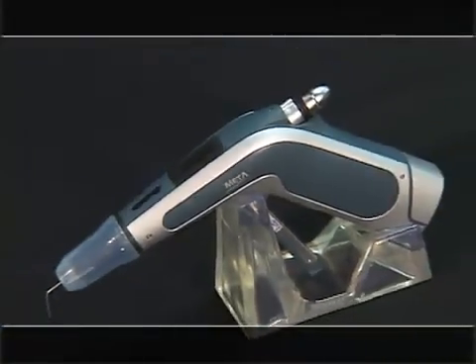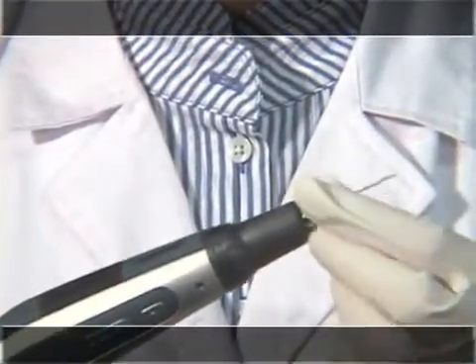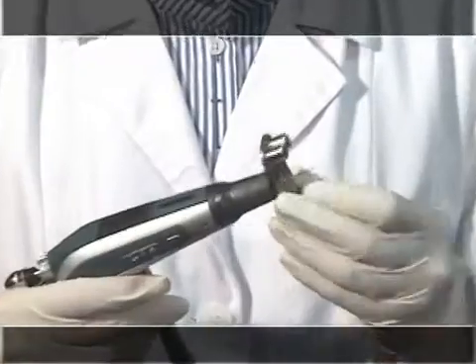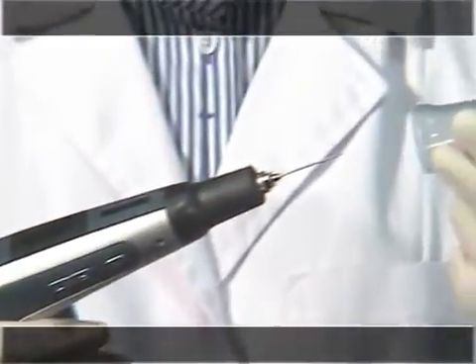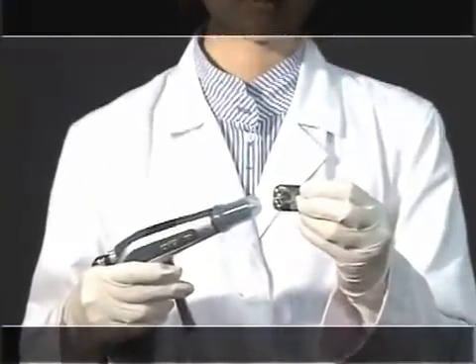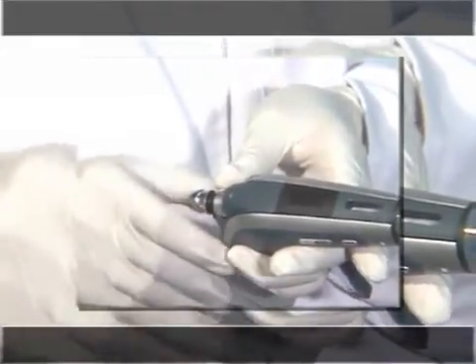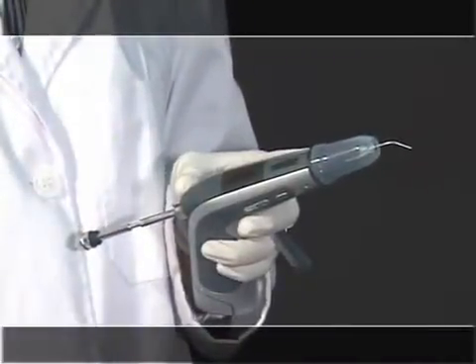This is the method of Master Gun operation. First, put the needle in front of the gun as the screen shows, and tighten the needle using the multi-tool. Put the heat insulator on as shown. Bend the needle as pictured in relation to the tooth being treated. Turn the plunger lever left and pull the plunger out to insert the Gutta-Percha bar, then push the plunger into the heating chamber.